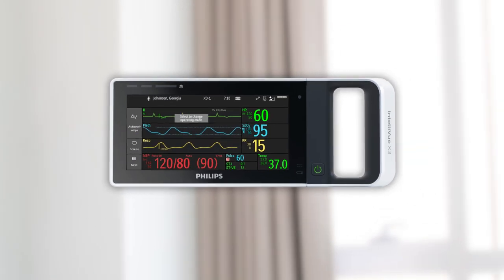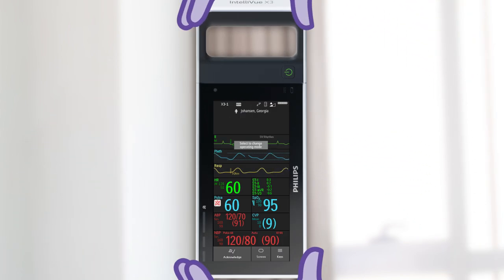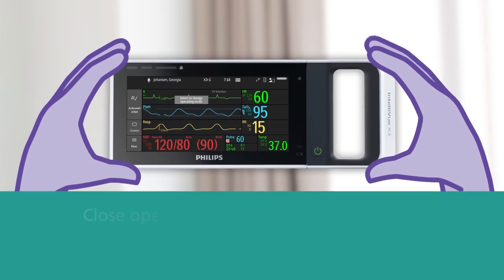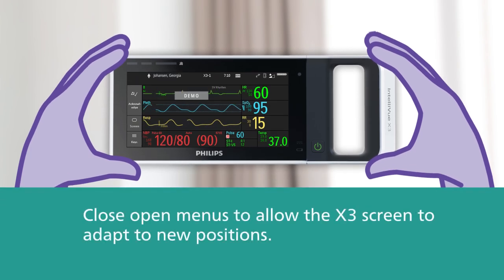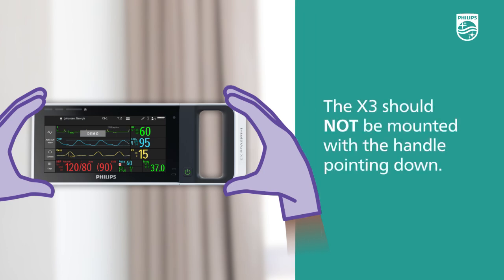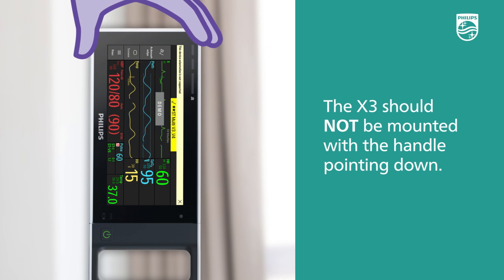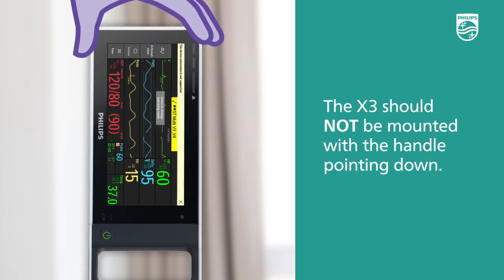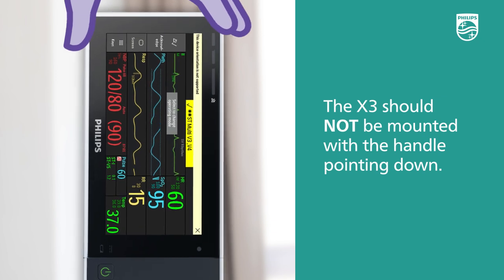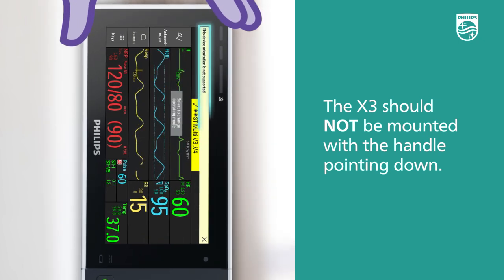When the monitor is rotated from a horizontal to a vertical position or back again, the screen adapts to the new position. If a menu is open, you must close it to allow the screen to adapt. The X3 should not be mounted with the handle pointing down. In this position, if the mounting release lever is inadvertently pressed, the X3 could release from the mounting and fall. If positioned with the handle pointing down, the screen does not adapt and an error message displays.